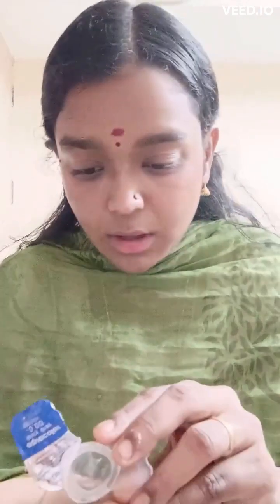After removal, add lens solution and gently clean the lens before replacing it back into the case. Every contact lens user has to clean their lens cases twice a day with lukewarm water and let them dry — not directly under sunlight but in a well-ventilated area. After the day is over, fill the case with lens solution, remove the contact lens, gently clean it, put it in the case, and tighten the lid. This is the routine contact lens hygiene regimen which every contact lens wearer should follow.